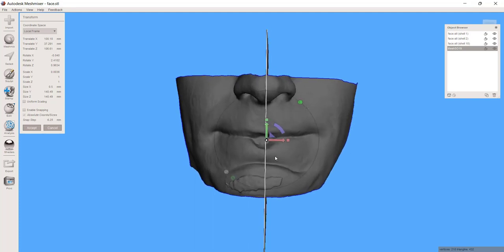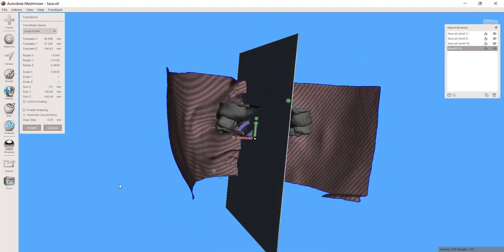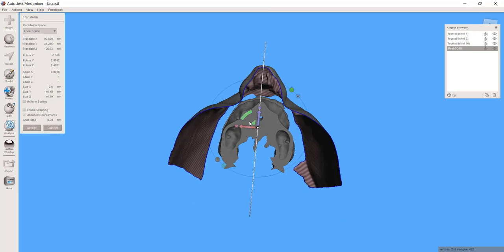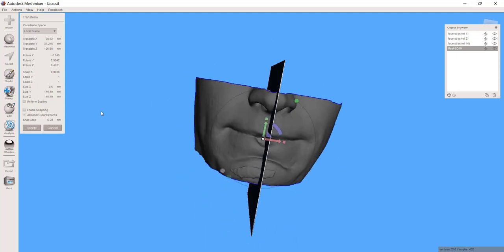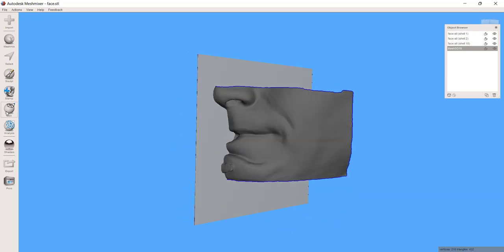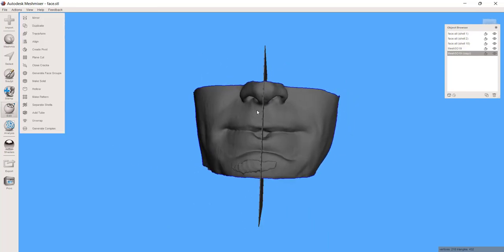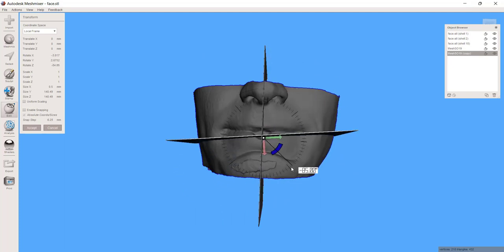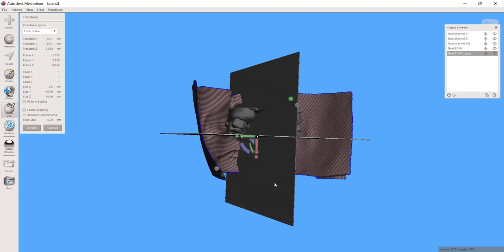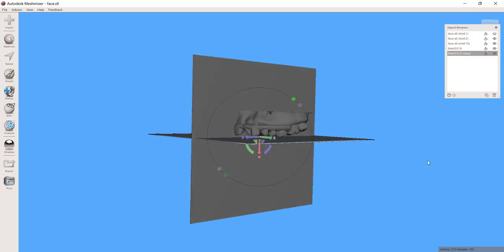What I want to do is get this where it's coming right through that facial midline. We can tilt it as needed. And as I'm looking here, I want this to come through the middle of his maxilla as well. Now that looks like a pretty good compromise between the two of them. So we've got that. And now what I can do is say Edit, Duplicate, and just hit T for transform — there's a second one of those — and I'm just going to rotate this by 90 degrees. And now I can move this up and down.